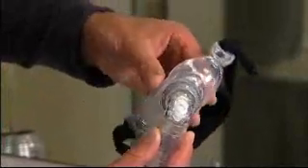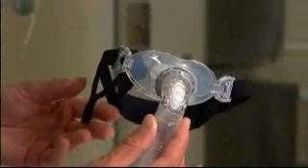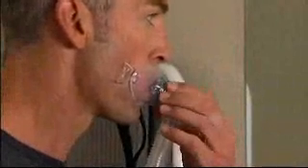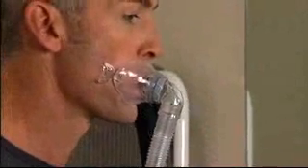The oracle is symmetrical and can be inserted either way up. The easy-release strap can be worn on either side depending on your preference. If the mask leaks around the teeth, tighten the snap flap cover by rotating the grey dial.